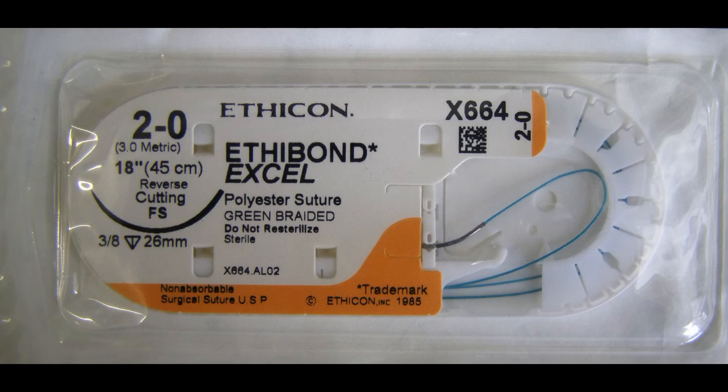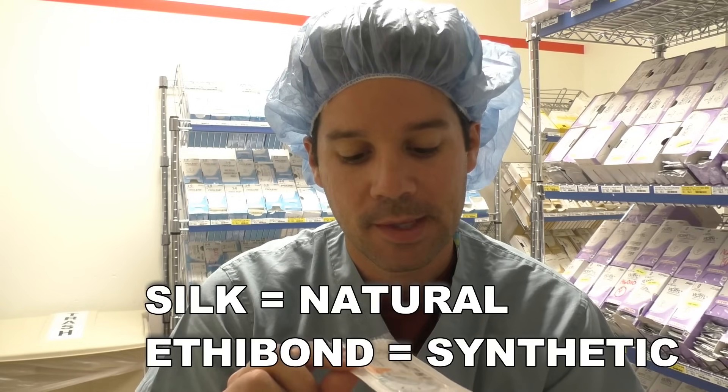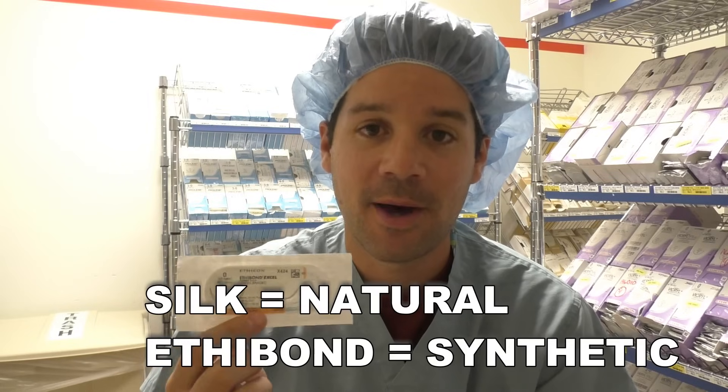The second multifilament suture is the Ethibond. The Ethibond has orange packaging, but the suture itself is green. I see this as basically a green silk — very similar to silk except it's green. They're both non-absorbable sutures, and they're used in many of the same ways. But one thing I never see silk used for that Ethibond is used for is hernia repairs in general surgery. A lot of the times they'll use a patch for the hernia and they'll use an Ethibond suture to secure that patch in place. I've never seen silk used for that — not sure why.